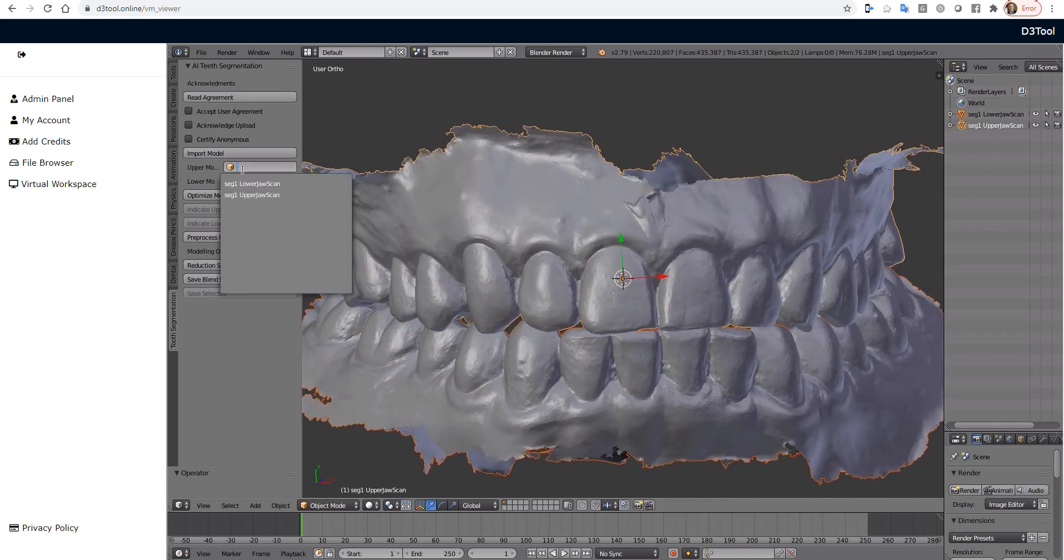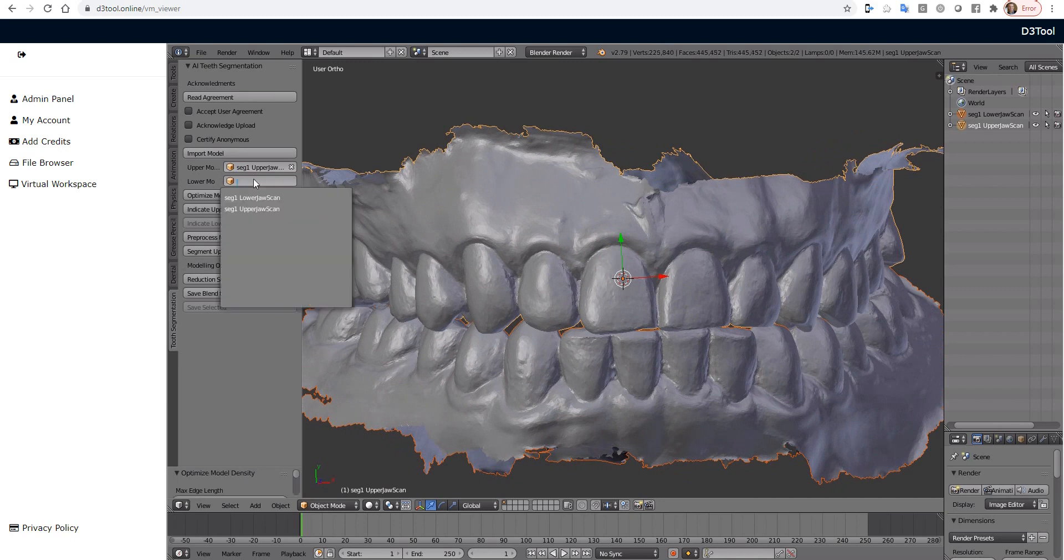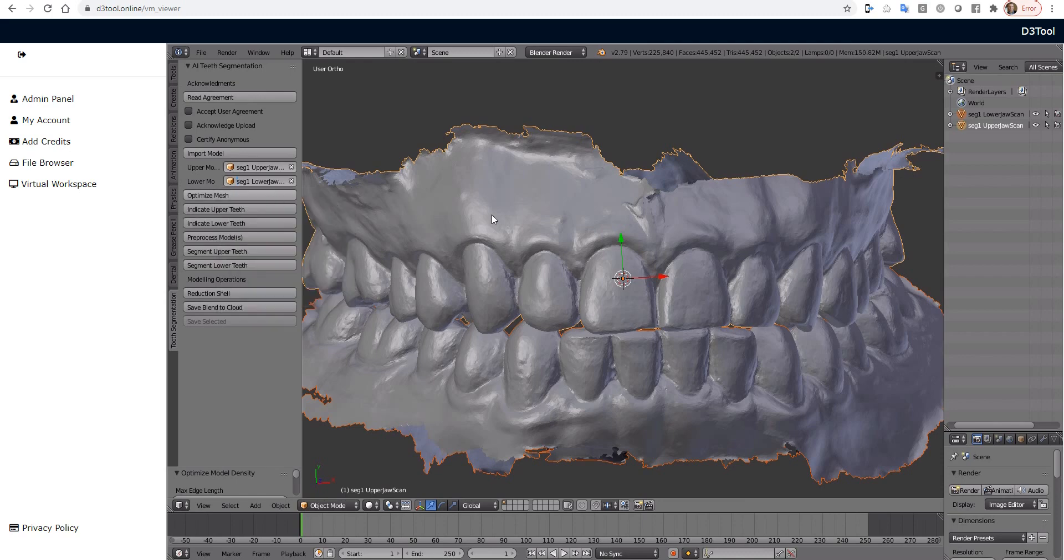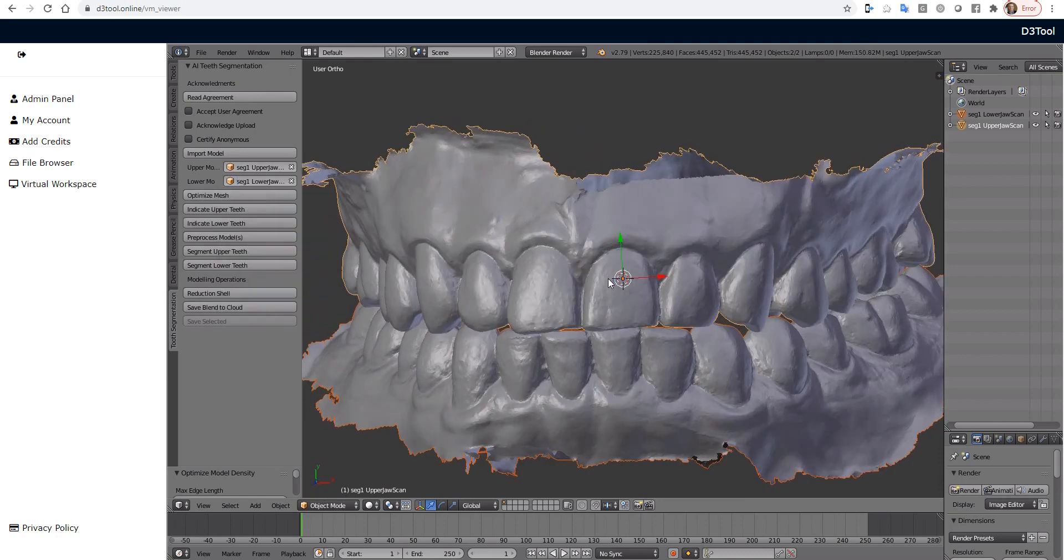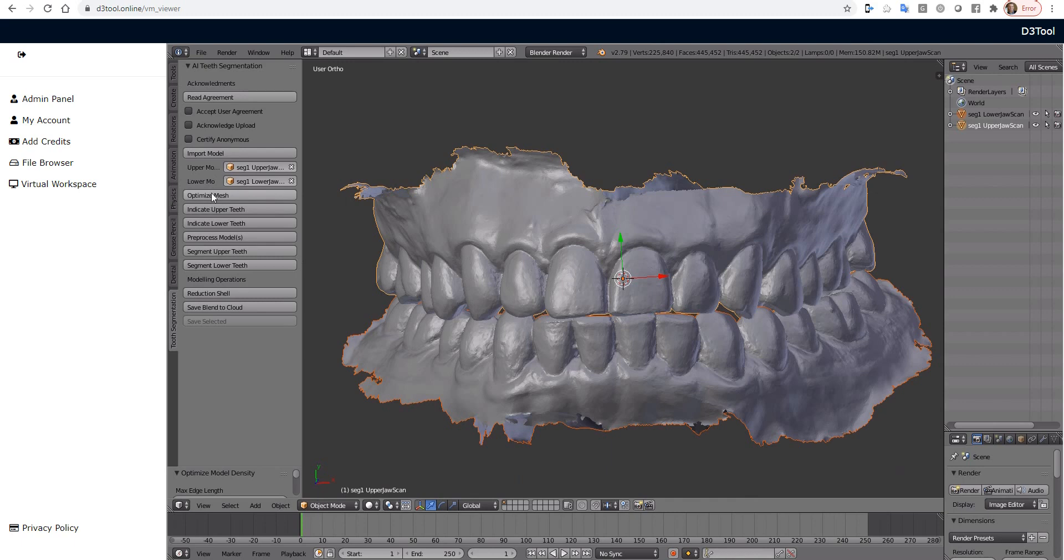So here I have two models. And so let's identify that the upper jaw is there. And a lower jaw here. So now we've got those two models identified. These are reasonably sized models, so they really don't need to be optimized. If you had really dense meshes, like if they were over 25 megabytes, you'd want to reduce these down by pressing the Optimize button.